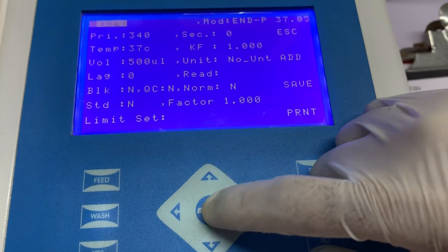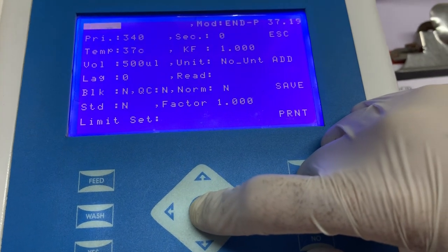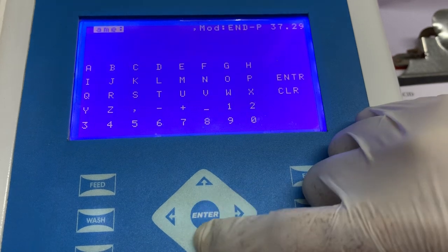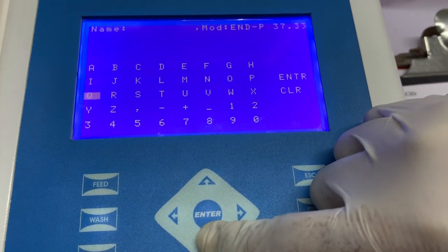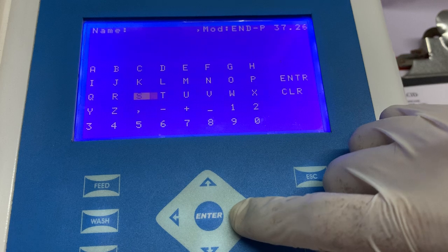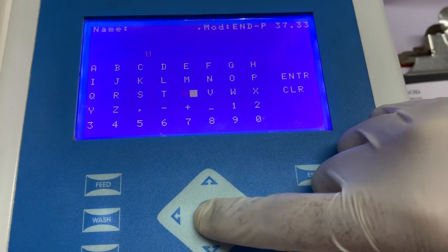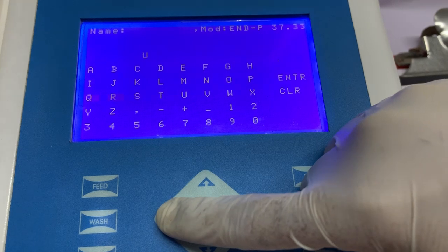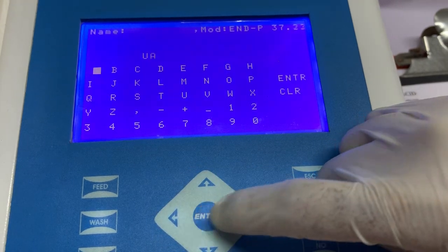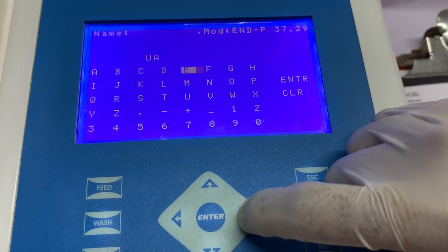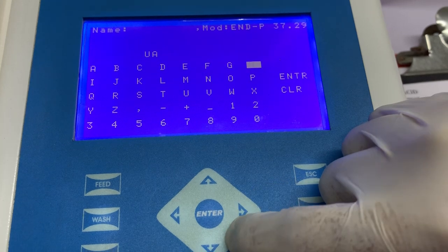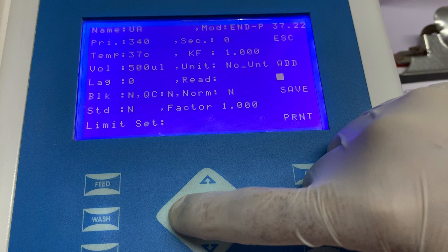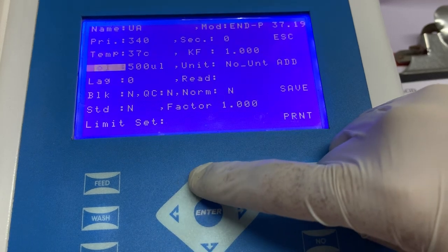Now, as you can see, there are multiple pieces of information that need to be entered here. The first information that needs to be entered is the name of the test. You can enter any name which is suitable according to your laboratory settings. In this video, we are entering UA as the name of the test. Once you have entered the name, press enter and come back to the home screen.